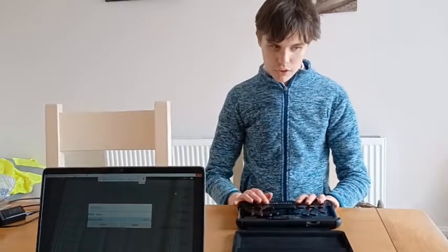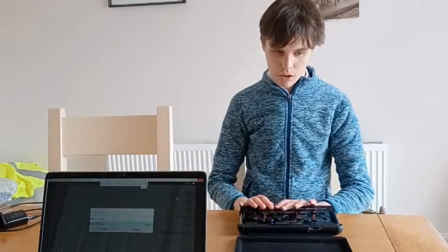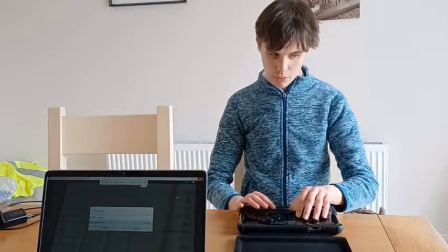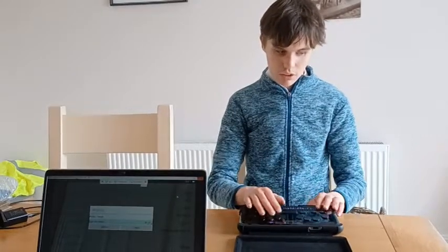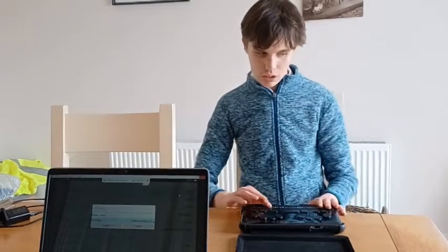I will leave this off. If you need 8 dot mode, then you can press space and dot 4 to turn it on. On 2 2 list item. And I'll turn it back off. Off 1 2 list item. Space and dot 4 or 5 again. Voice type, Braille Sense Vocalizer 1 2 list item.